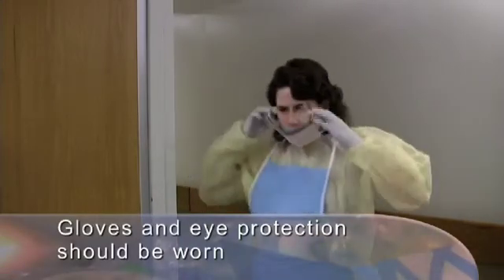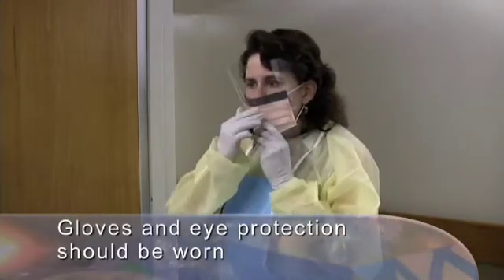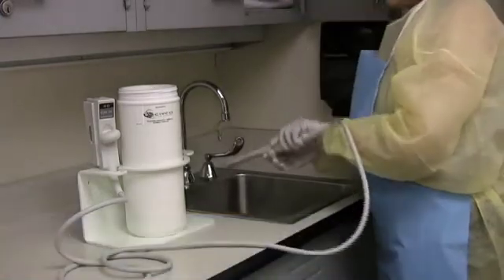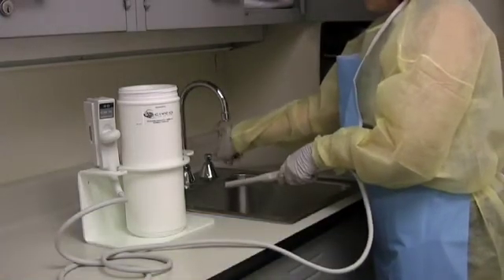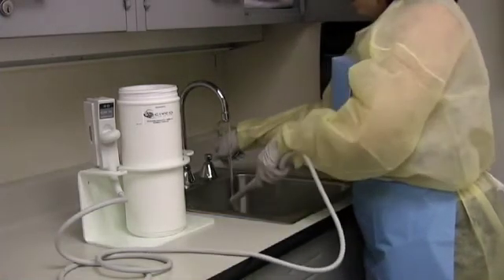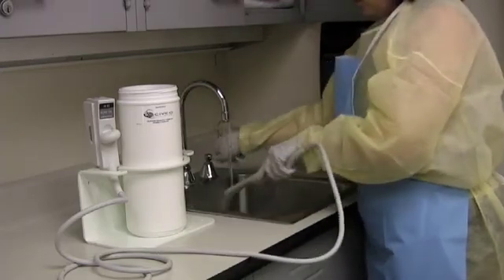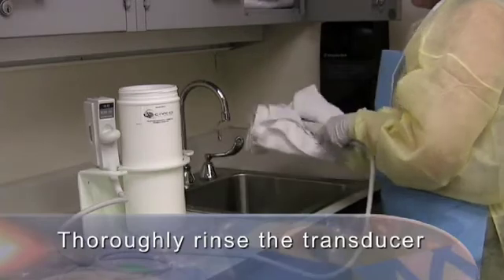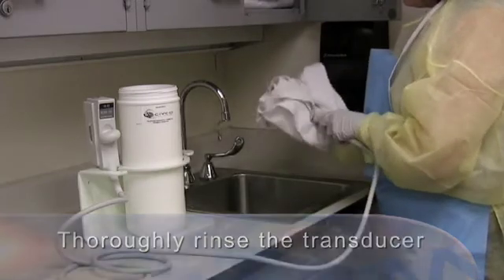We'll begin with the transducer being soaked in a disinfecting solution. At a minimum, gloves and eye protection should be worn whenever working with a disinfecting solution, particularly glutaraldehyde-based solutions. Remove the transducer from the disinfecting solution. The transducer should have been thoroughly cleaned after the previous use and before being placed in the disinfecting solution. Thoroughly rinse the sterilizing solution from the transducer, and dry with a soft cloth.